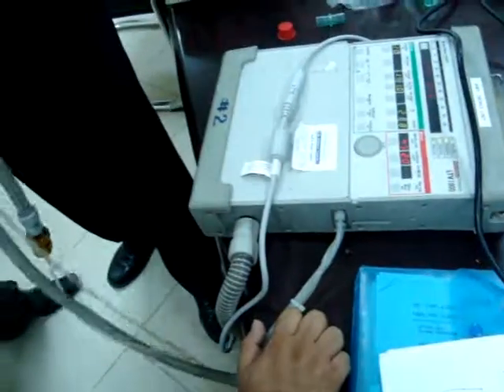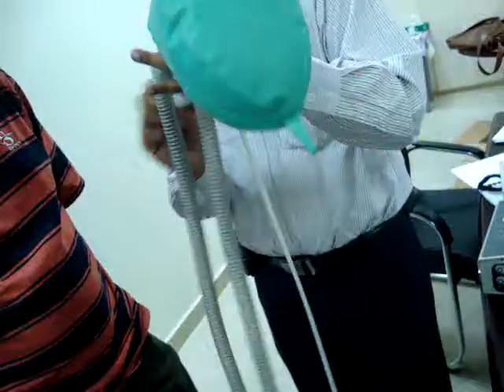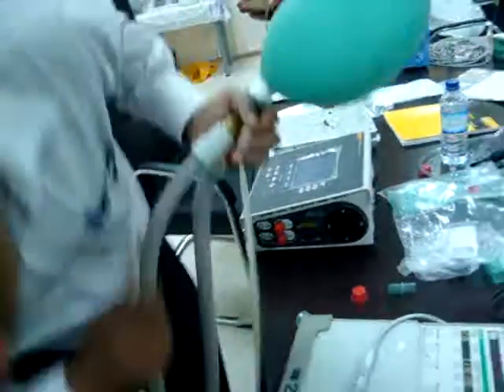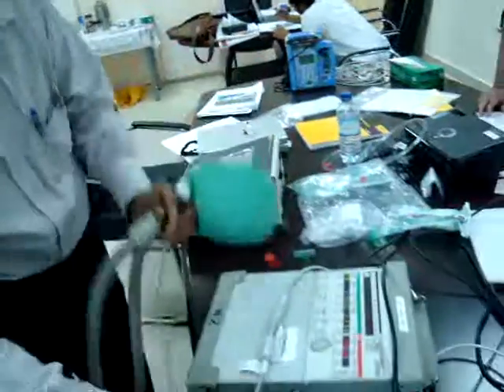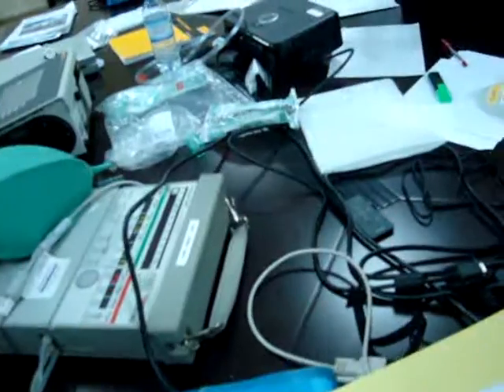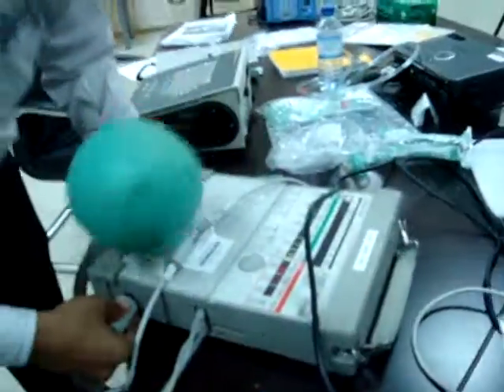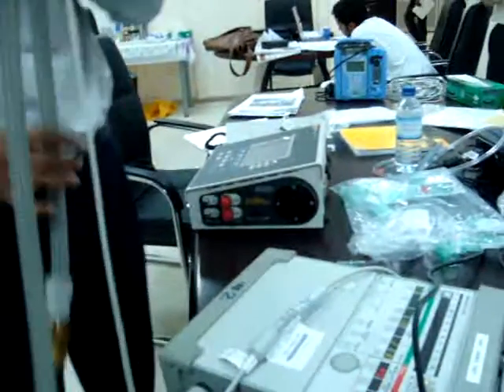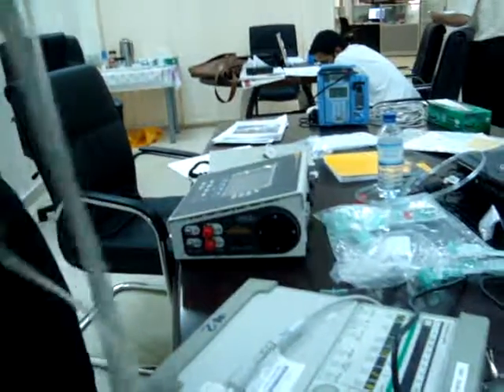Usually with a ventilator you will have two lines, but this machine doesn't need that. This is the output. The output is going from here. The return air is coming from here, going to this. This is output, okay? This output and the return air. The return air is coming from this circuit, because there is a sensor there.